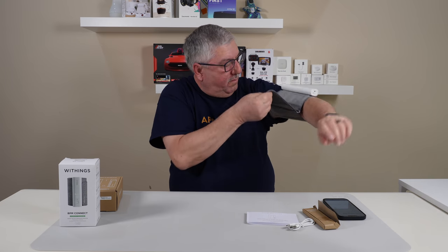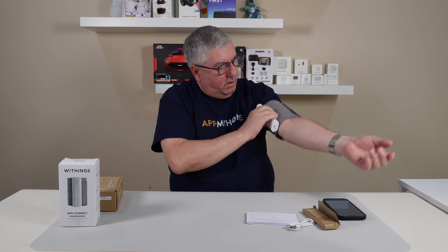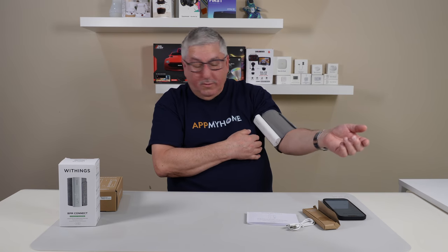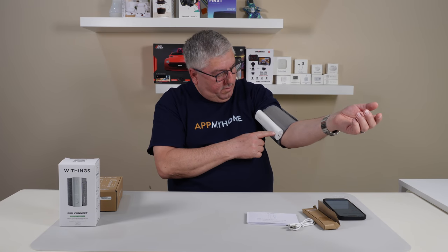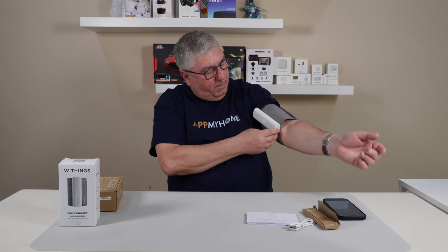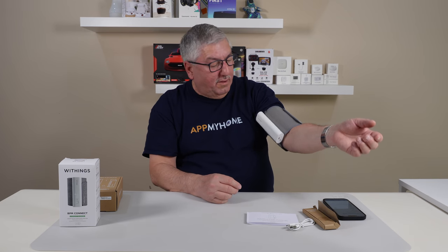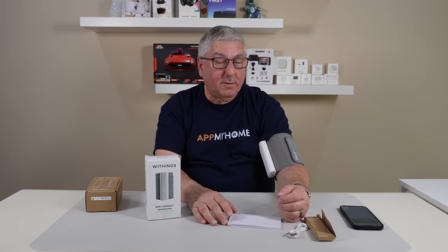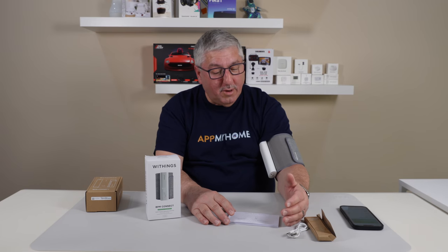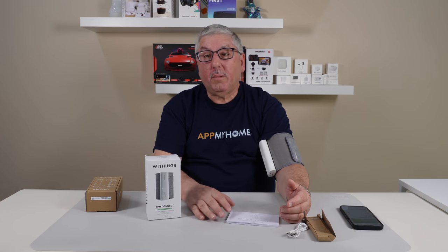Let's see. Bring it on here, bring it around. You're supposed to bring it like this — it's supposed to be where your heart is. Then you just press the button and it says blood pressure, so BP. Press it again. I'm going to do it another time, because I was told by the boss that I wasn't doing it right. So let's have your arm relaxing on the table and your feet flat on the ground, then press it again to do the blood pressure.